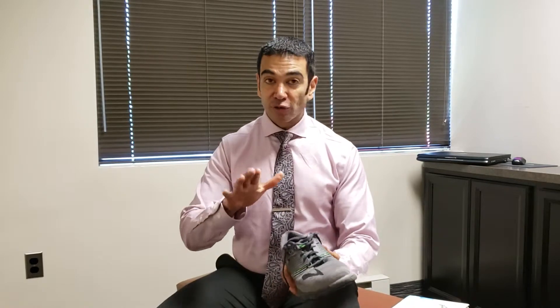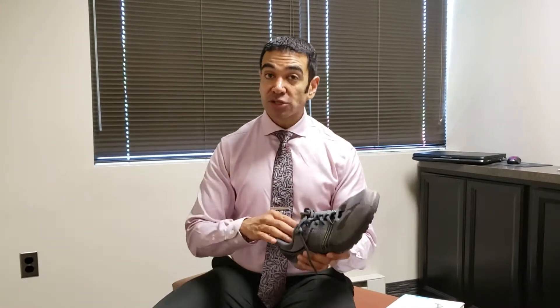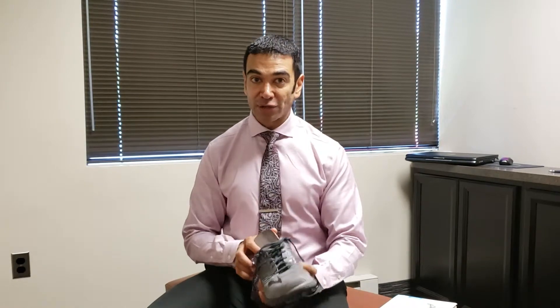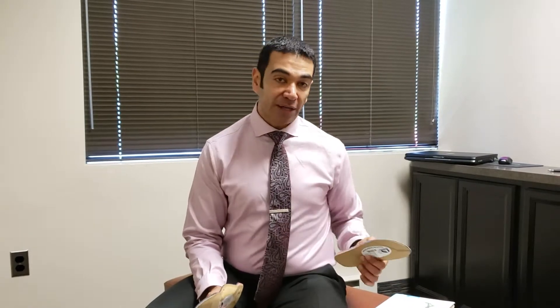So these are my sneakers here. Normally, sneakers like this have an insole that comes with the manufacturer. I've thrown that away and have my actual orthotics in here, so I'm going to pretend this came with the shoe. Just imagine these are brand new — I just opened the box, pulled them out, and I pull out the insole. I want to make sure that the orthotics I just bought can fit into my shoe. A lot of times the orthotics that Foot Levelers makes for you will be fit to your foot — that's why you have to be wearing the right size shoe, because we just scanned your feet. We know exactly how large your feet are, and they take 22 calibrated measurements from each foot. So when they make this brand new orthotic for you, it's fit to you. It should fit into your shoe just fine.